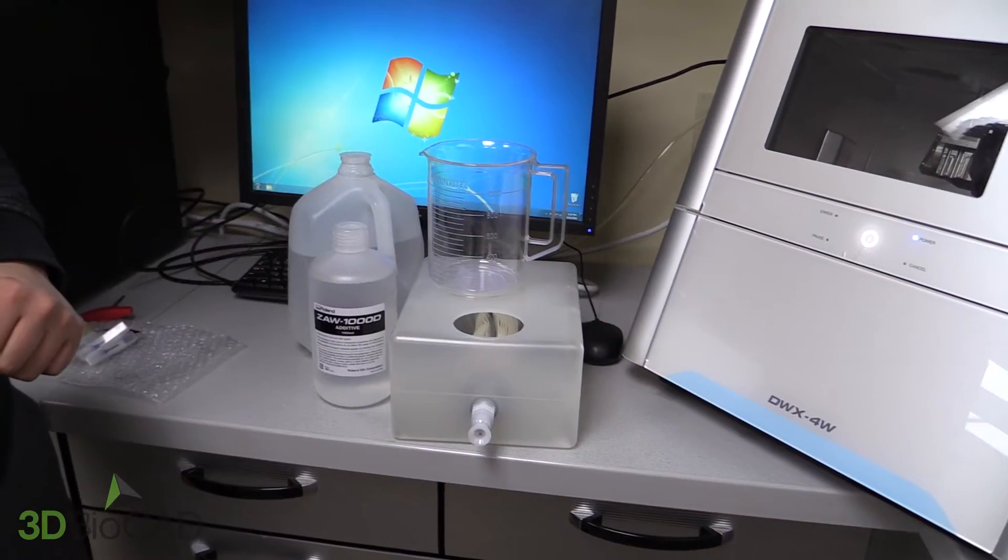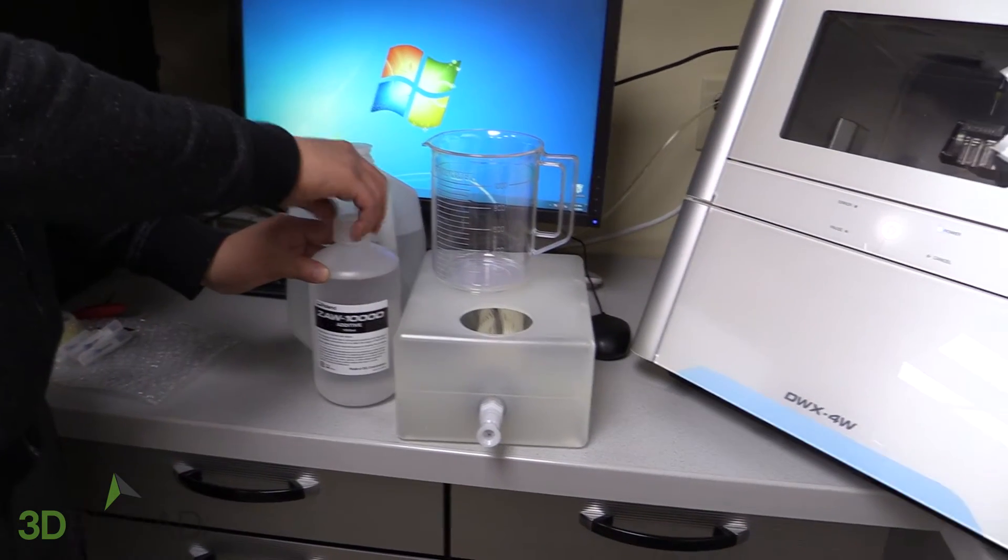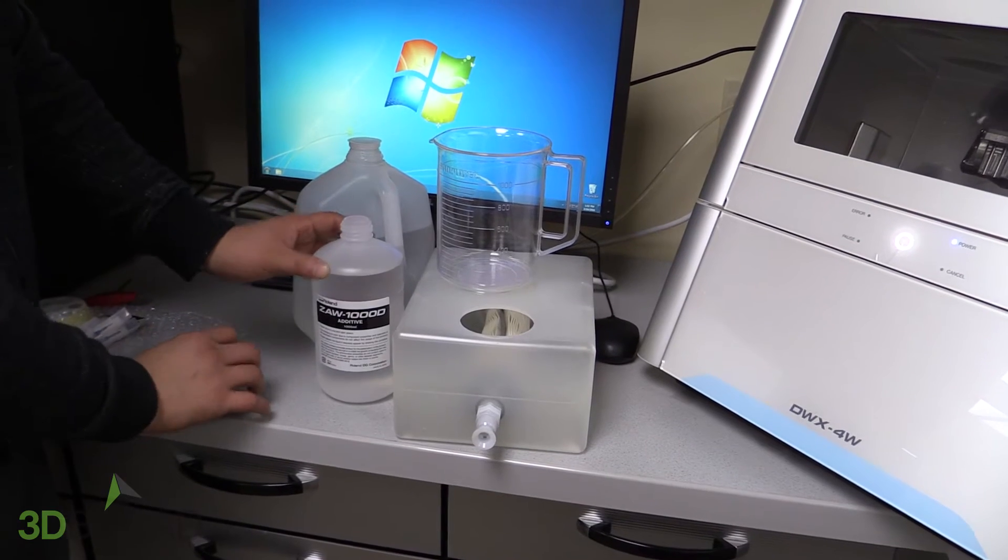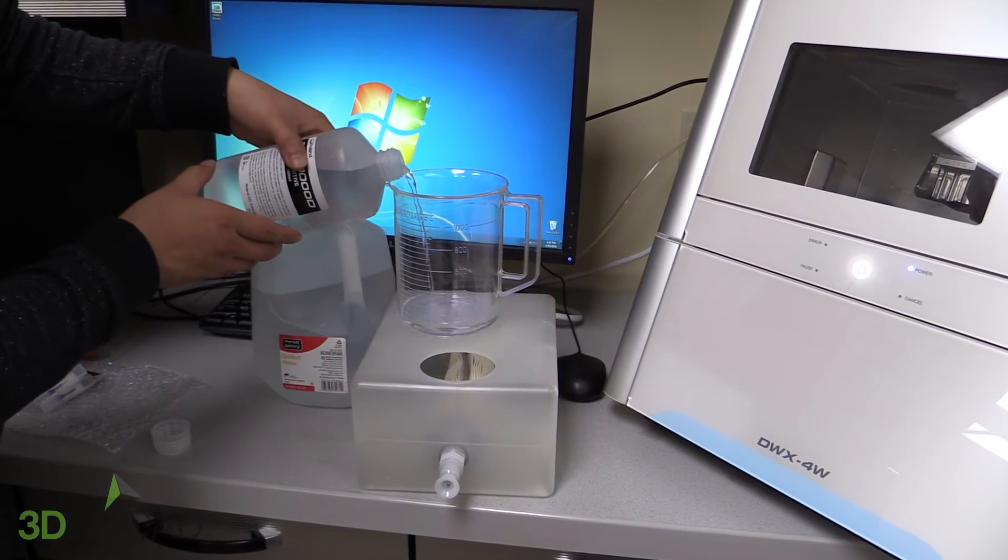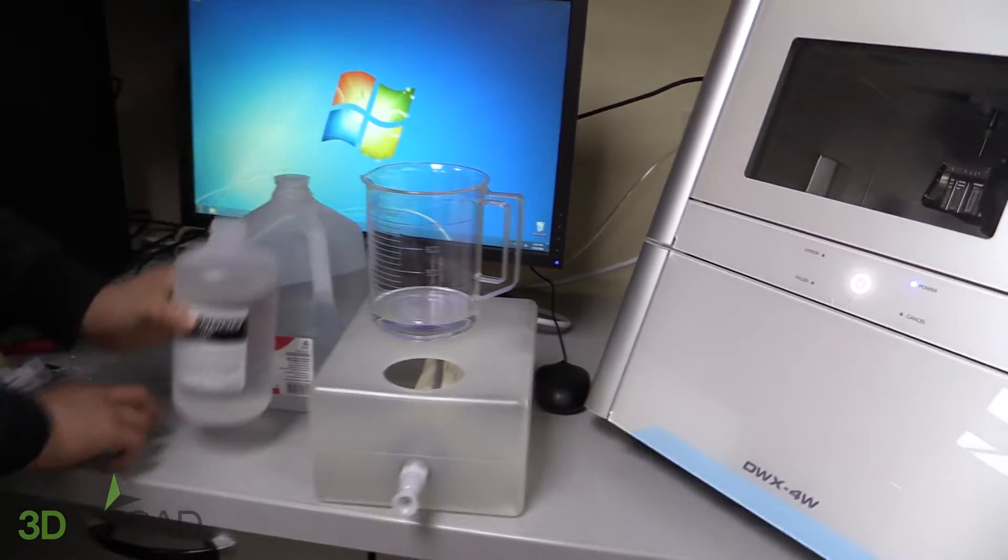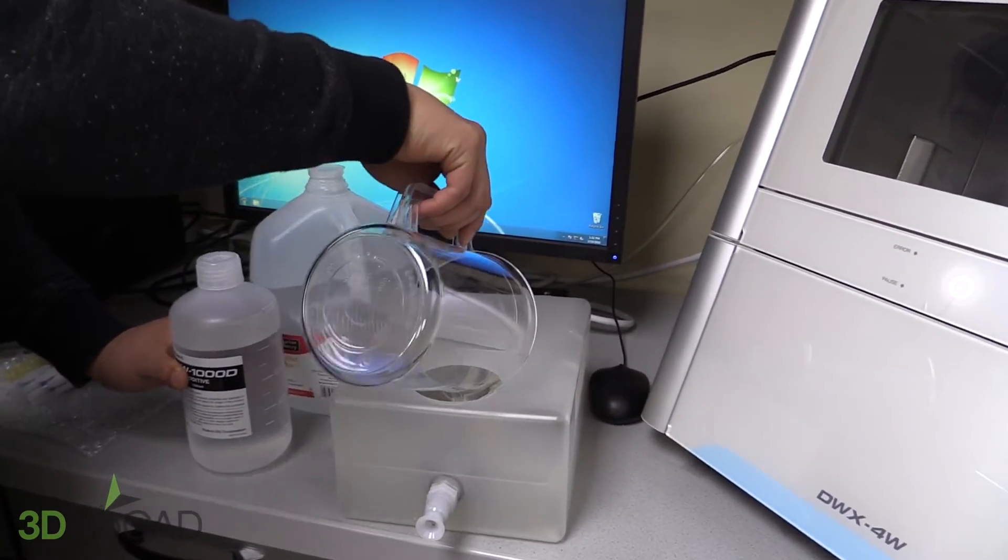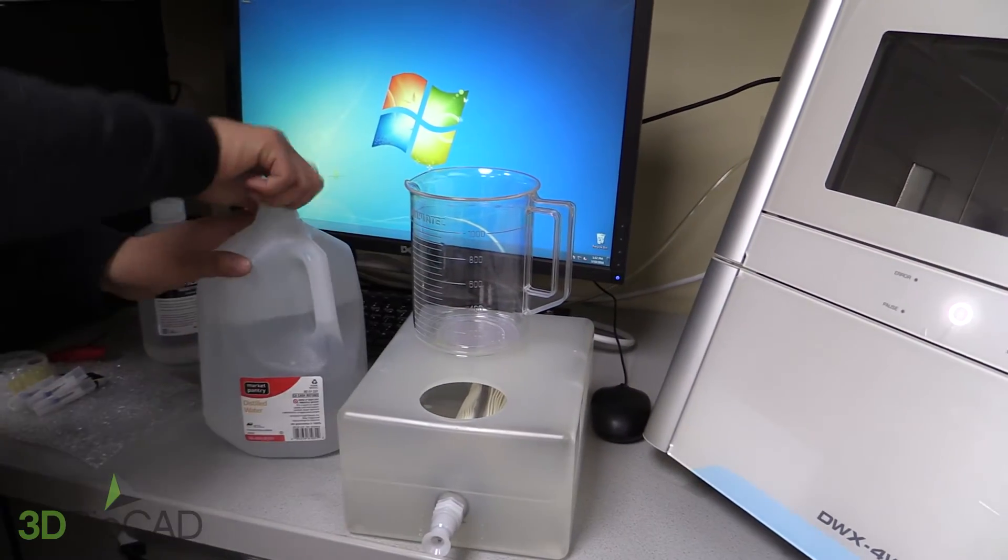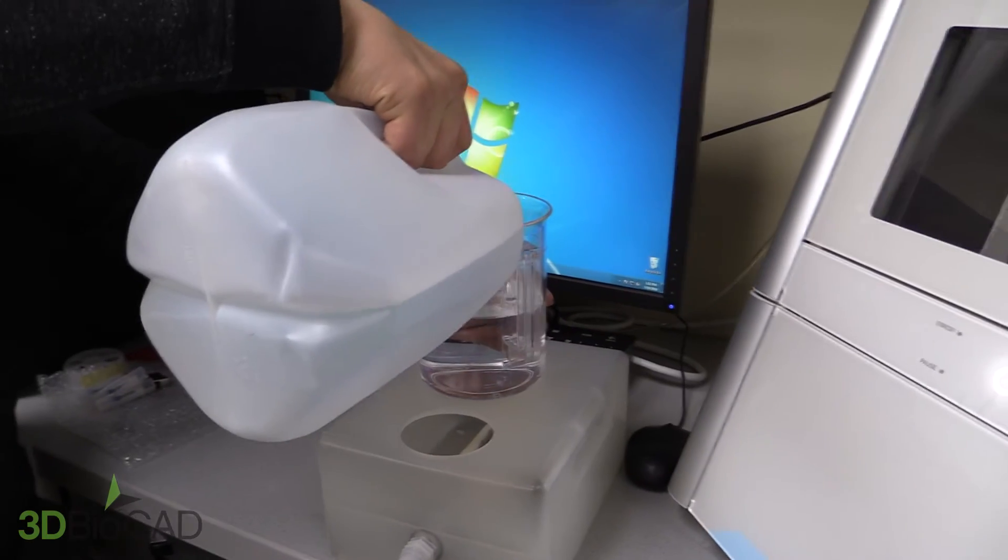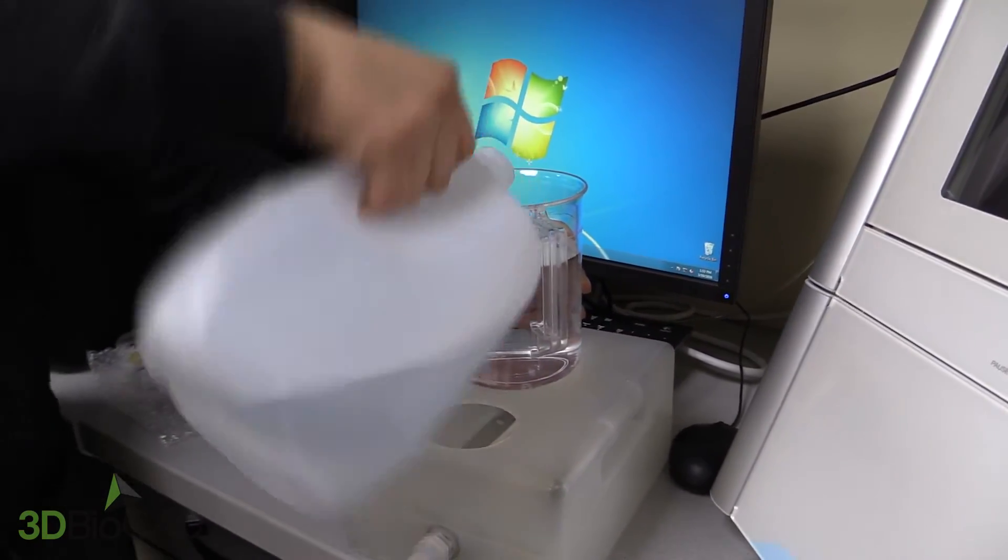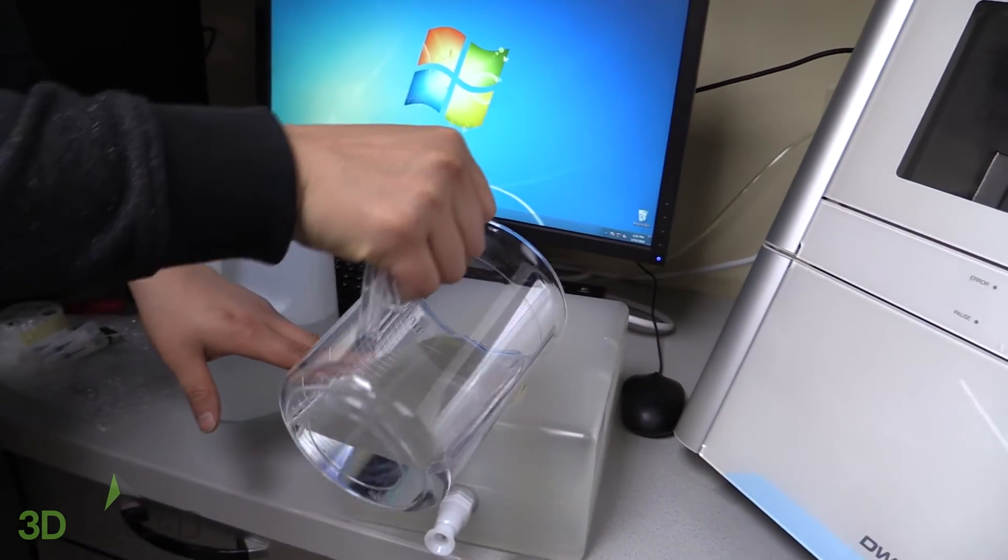Now it's time to fill the coolant tank. Filling the coolant tank you will need 150 milliliters of coolant additive and 2850 milliliters of distilled water. Using the provided measuring tank, fill the tank from the top.